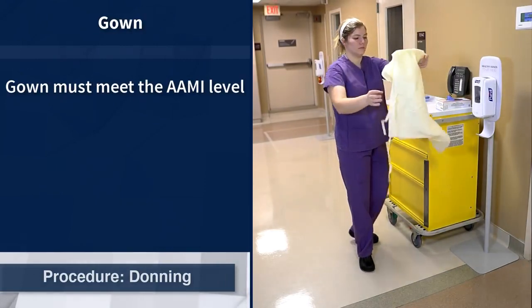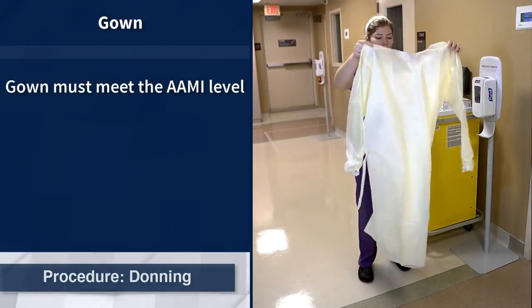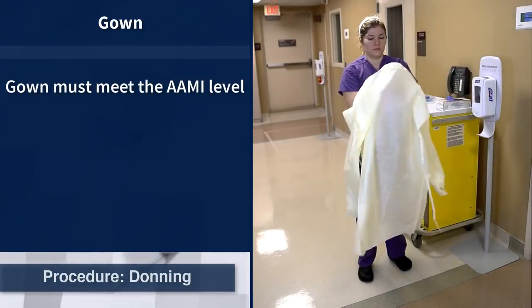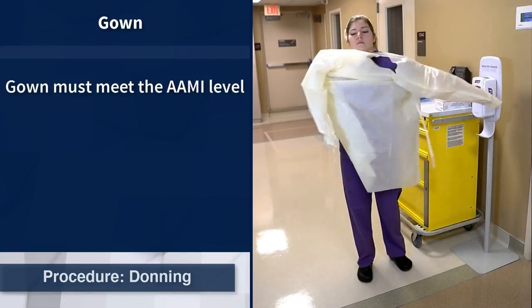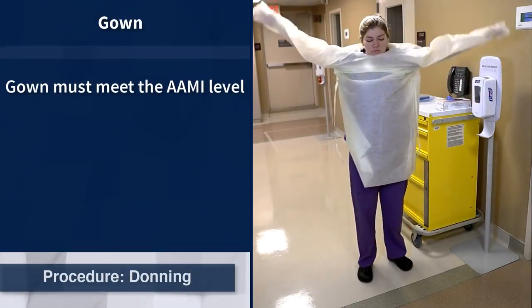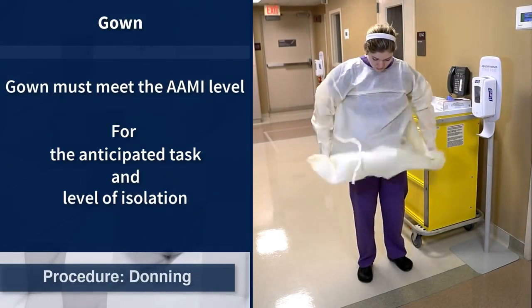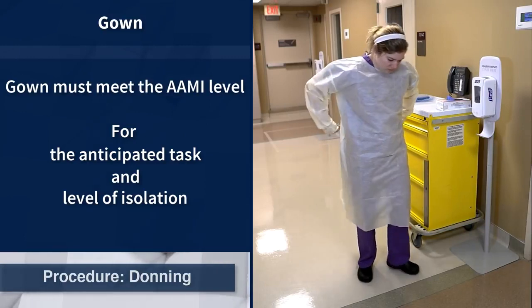Now that the appropriate PPE has been gathered, checked for defects, and hand hygiene performed, the first item to be donned is the disposable isolation gown. Ensure the disposable gown meets the Association for the Advancement of Medical Instrumentation standard for the anticipated task and level of isolation, and don the gown following the manufacturer's recommendations.